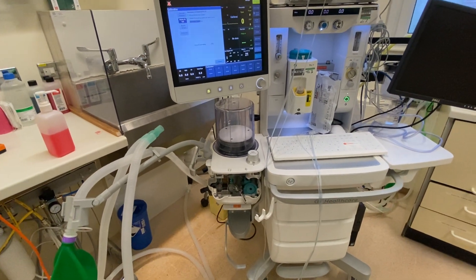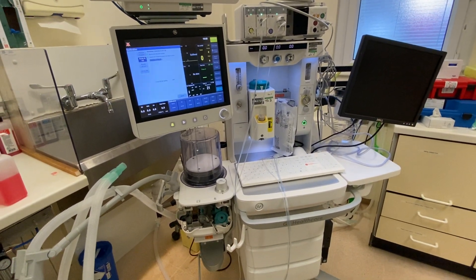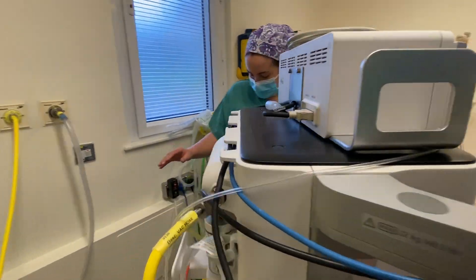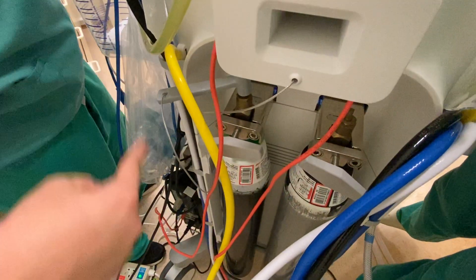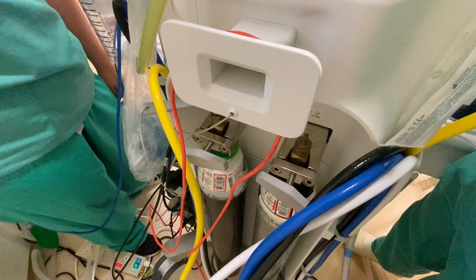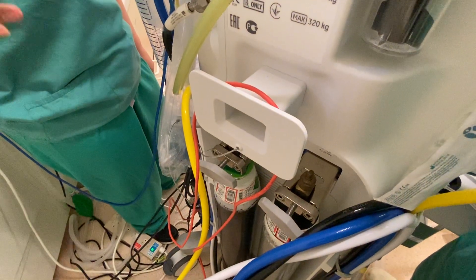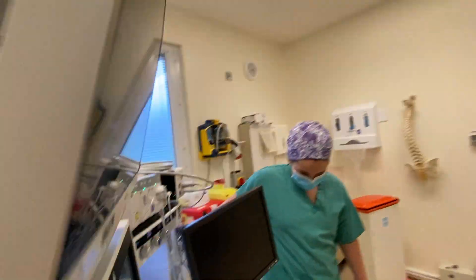This one takes its time. Once I've done that, I'll make sure that the emergency cylinder on the back of the machine is full, and then that's the end of it. I can't do it while we're calibrating because obviously it delivers oxygen, which then throws off the percentage it's calibrating to. I can deliver oxygen in an emergency.